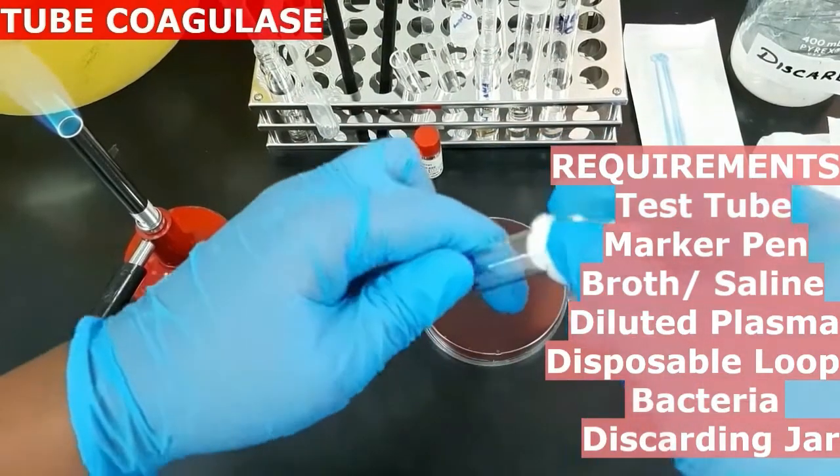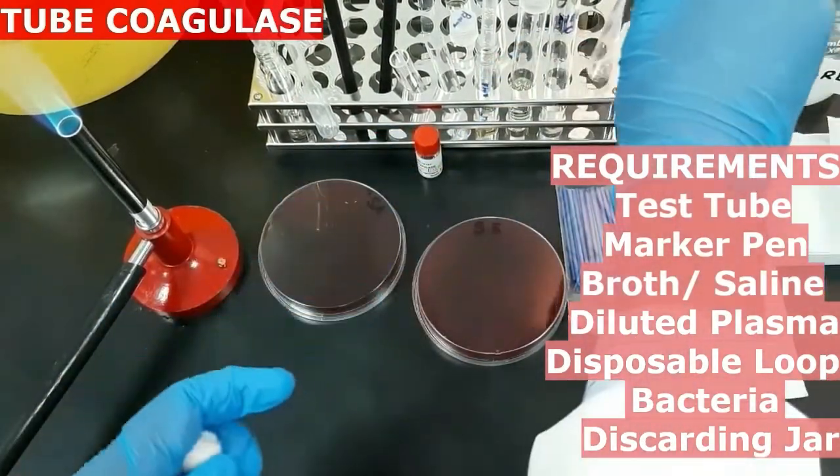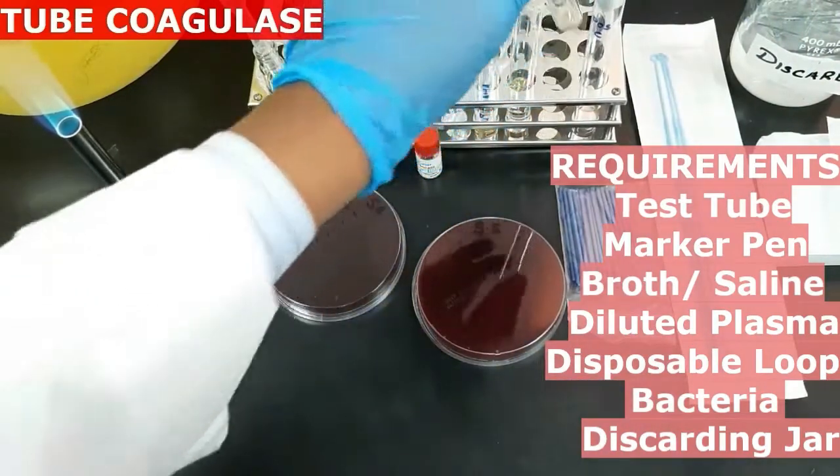Then plug the test tube with cotton and keep it in the incubator at 37 degrees Celsius for 3 to 4 hours.